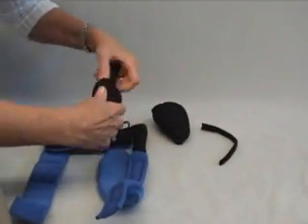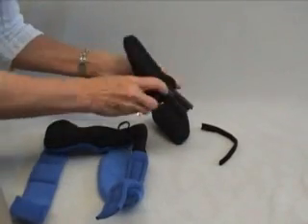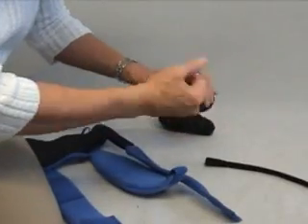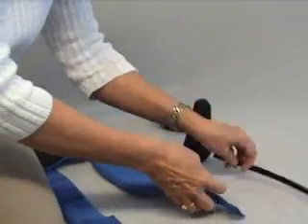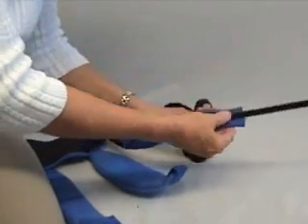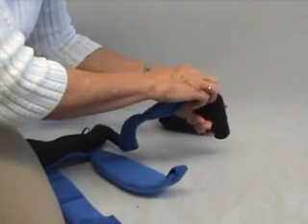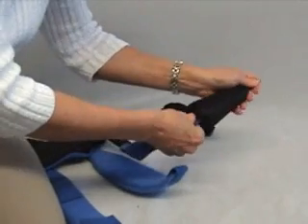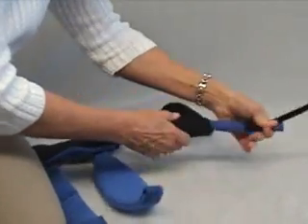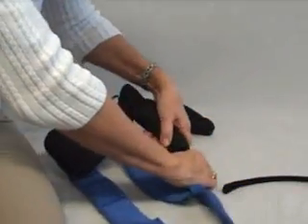You'll notice it's a little rough to keep the material in, but I'll line it up and then simply push it down far enough that the opening pops open so you can get your straps through. This little handy piece comes in your package — put it on the Velcro on the one-inch strap. Then slide this through the hole, pull your strap through, take this off and save it because you'll need to do that again. Simply slide that on.